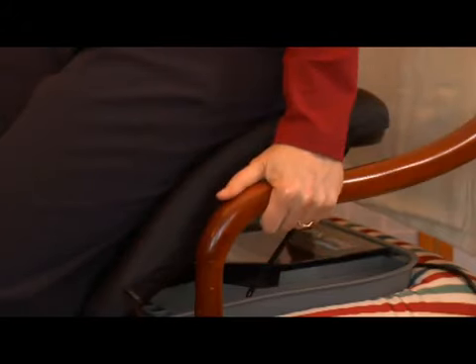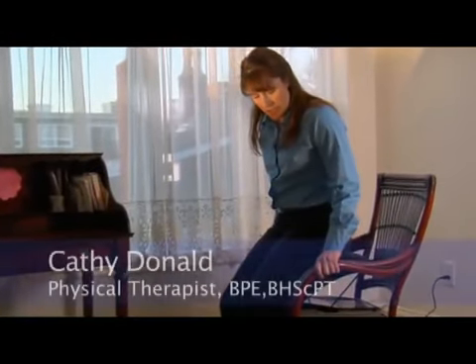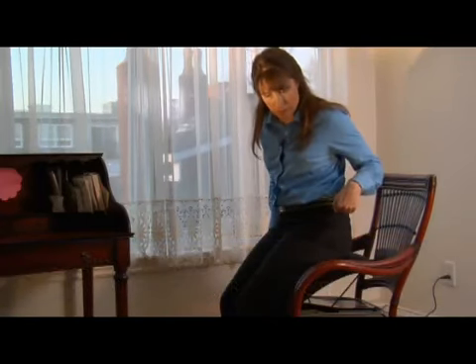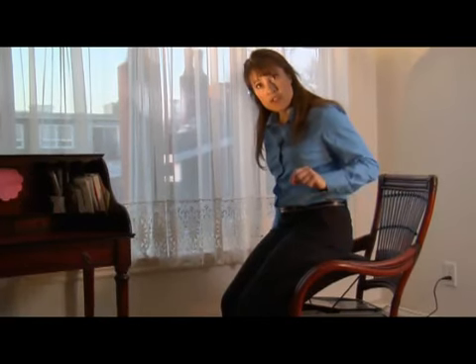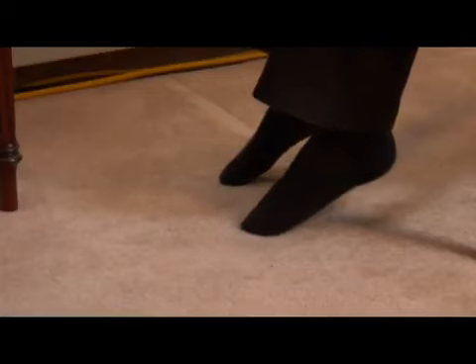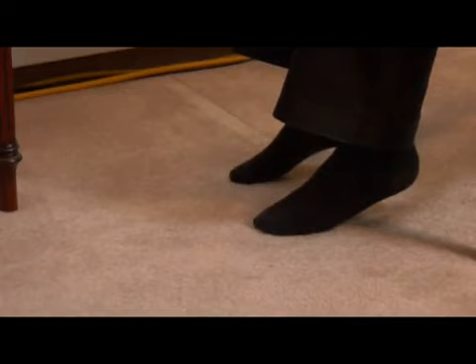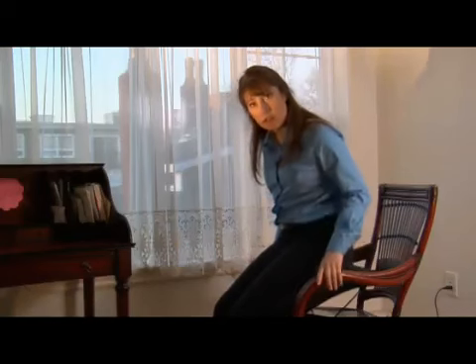Now sit as you would in a regular armchair with your weight evenly distributed. I have my arms on the armrests for increased stability — this is the way it should be used. My feet are flat and I can push the lever and lower myself down. Unfortunately, sometimes people will wiggle and try to get right to the very top with their feet not on the floor. This is not the way the product should be used. You need your feet flat on the floor.